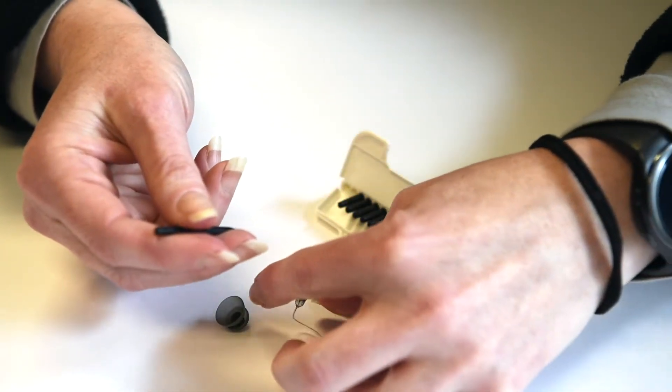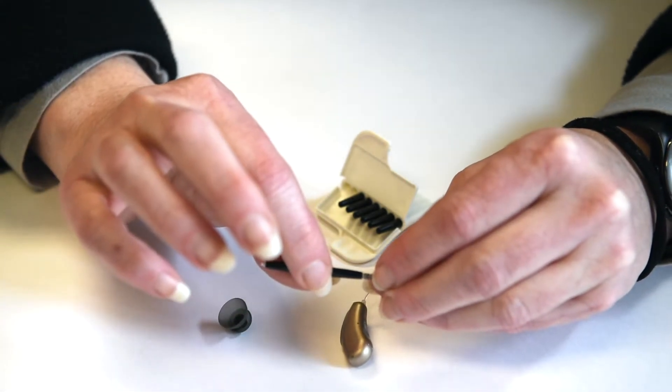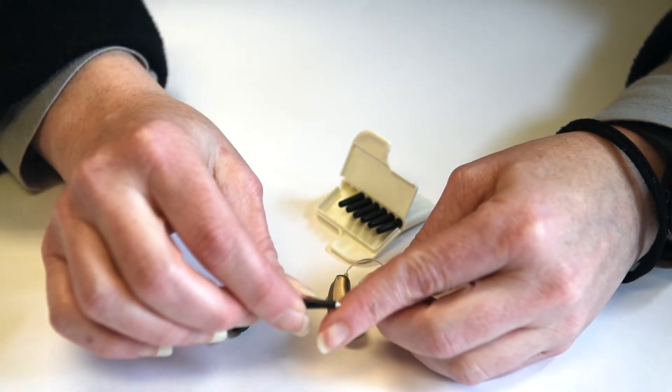What you're going to do is poke the empty spike into the old filter, and you're just going to pull it straight out. And as you can see, it's now attached to the stick.